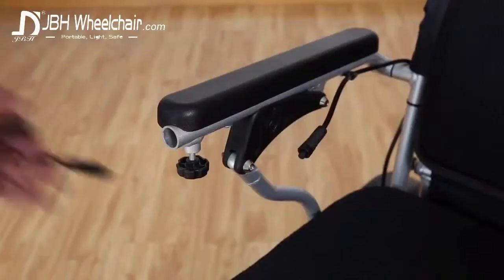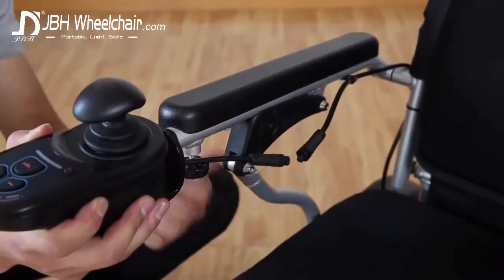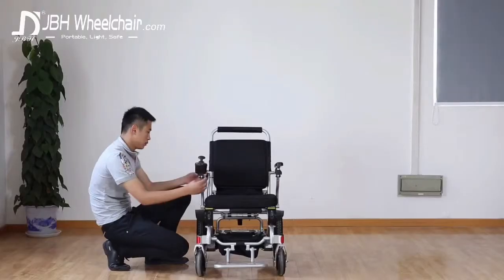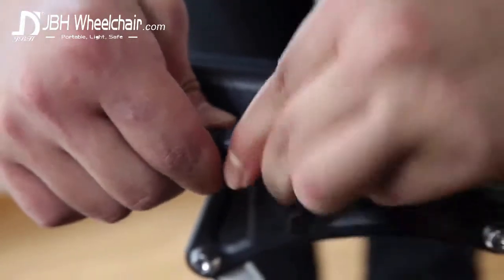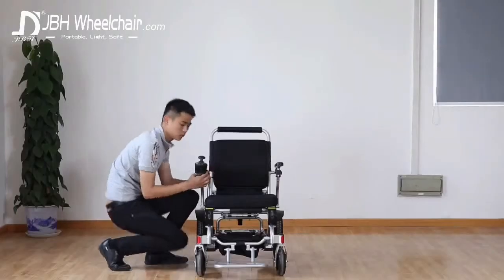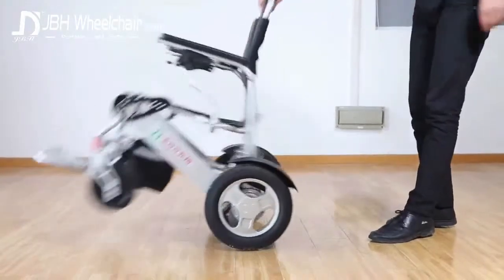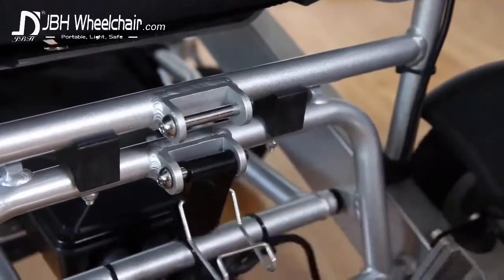Add the joystick by the simple screw-on mechanism which is easy to access and will remain connected even when traveling on uneven surfaces. Flip the chair open in one simple movement, then lock the system using the sturdy, safe and reliable clip at the back.